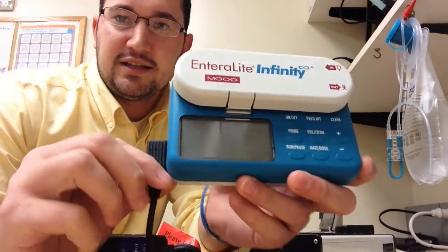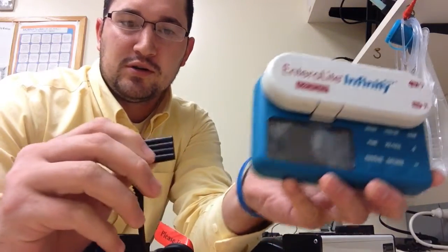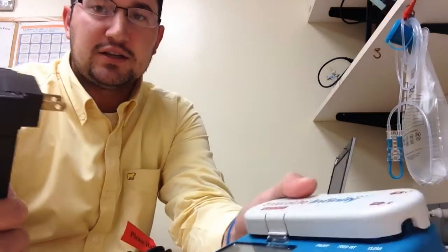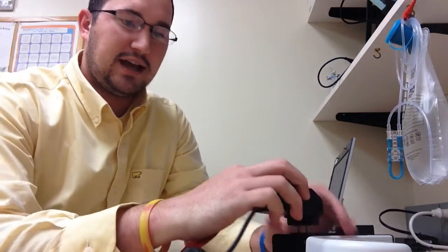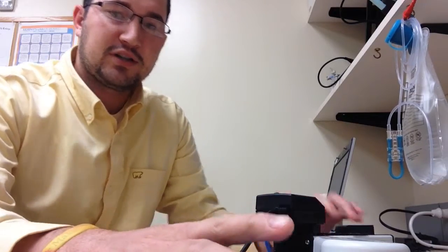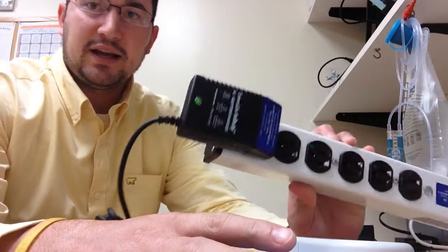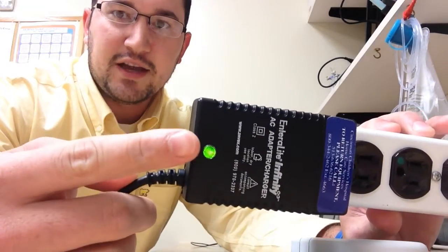It comes with an AC adapter that is removable. The first thing you'd like to do is check and make sure that the AC adapter and the pump are both functioning properly. When you plug it in, you'll see a green light here on the AC adapter.